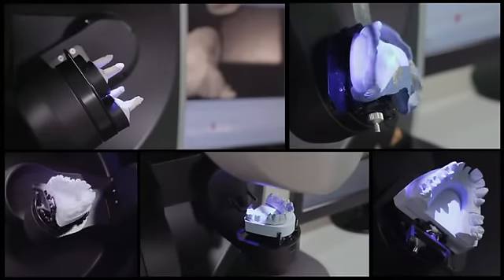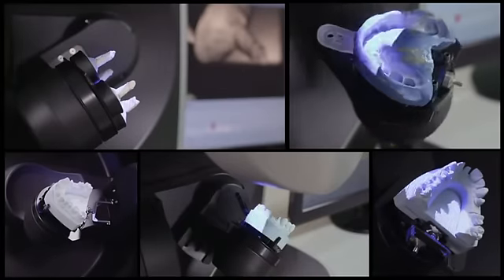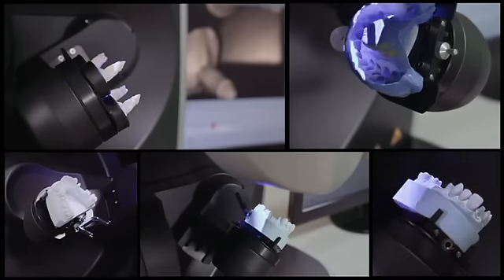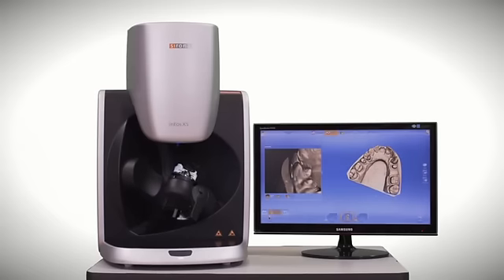Sirona Dental, the pioneer of digital dentistry, is the first manufacturer in dentistry to introduce robotic scanning into your dental laboratory with the revolutionary new laboratory scanner INEOS X5.